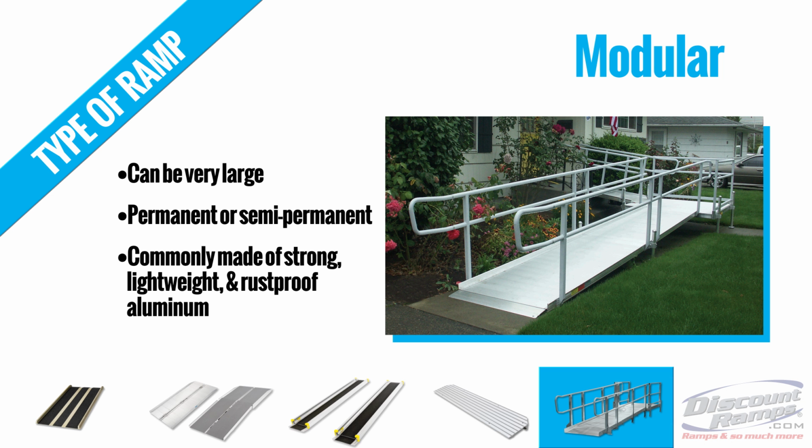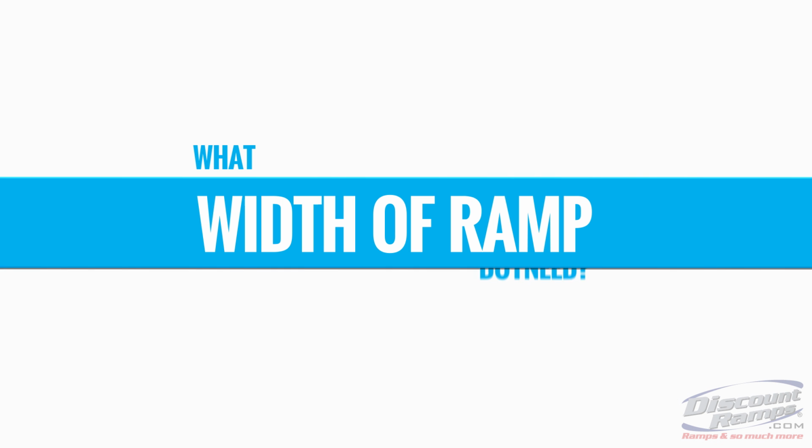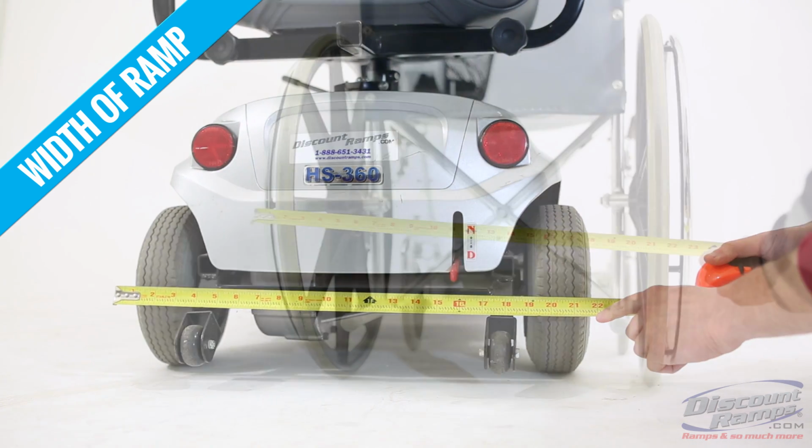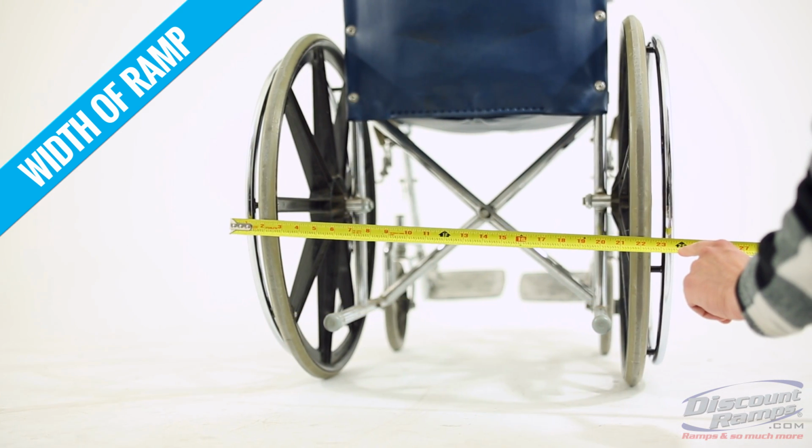There are a few other things to keep in mind when choosing a mobility ramp. The first is the width of the ramp. This will be specified for each ramp. Make sure the ramp is wide enough for your mobility device, leaving a few inches to spare.